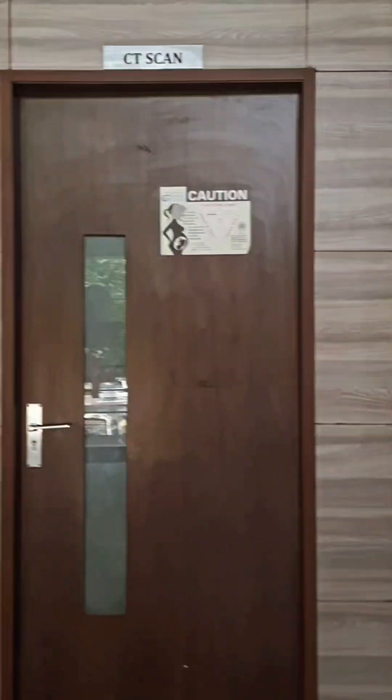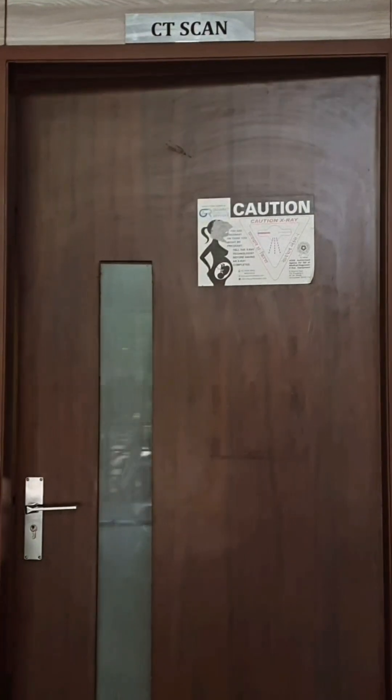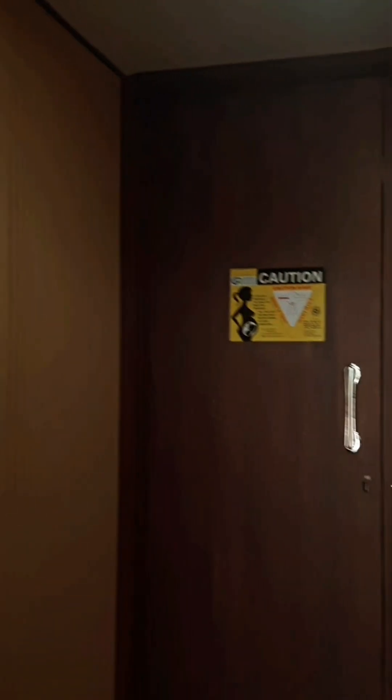Hello everyone, I am a radiographer. Today I will give you a detailed tour of the CT scan area including the console room and the gantry room. Let's begin here at the CT console room.